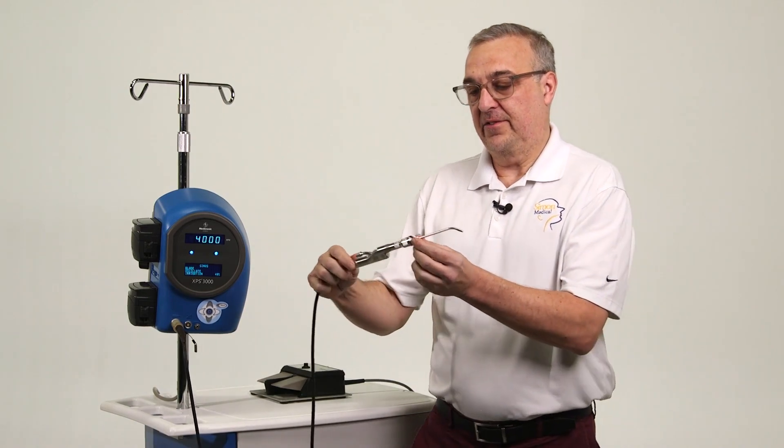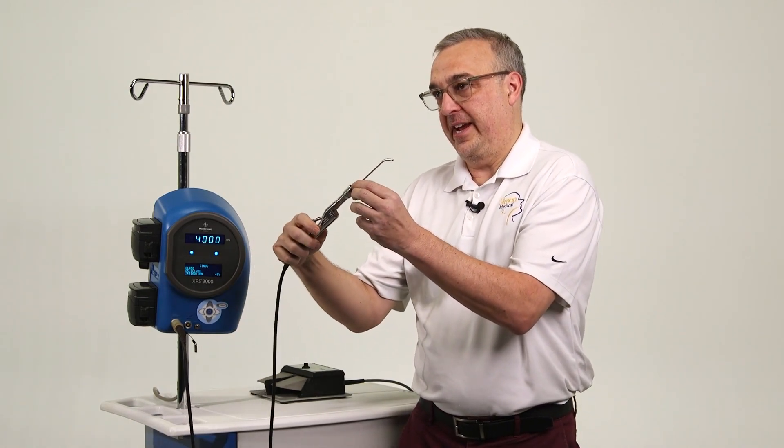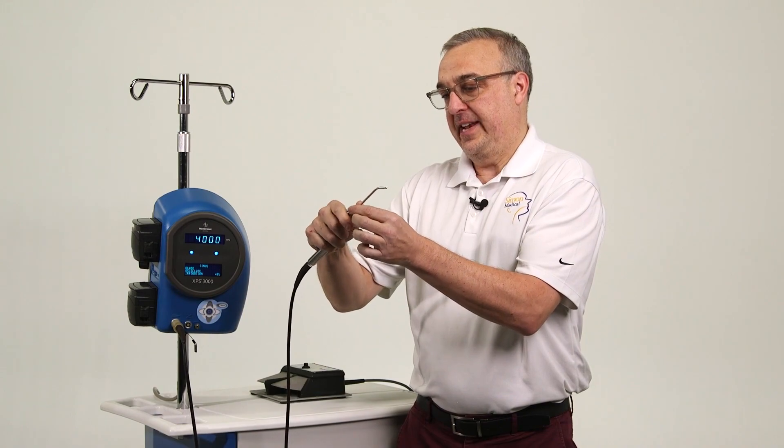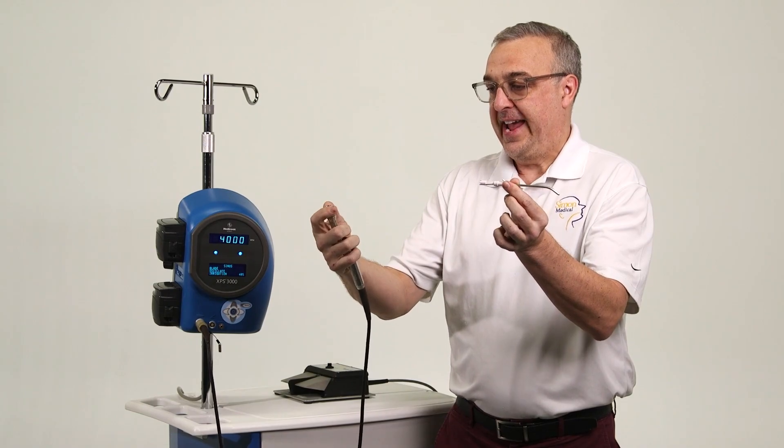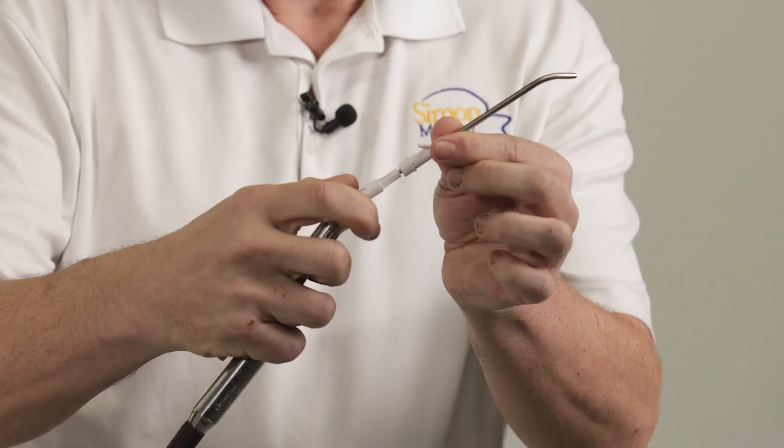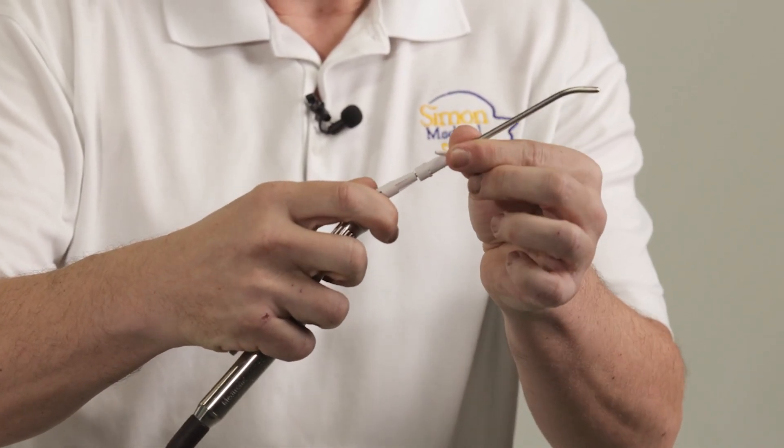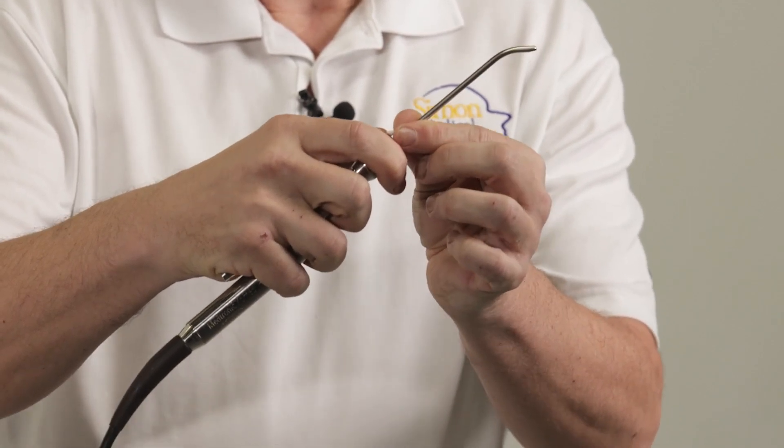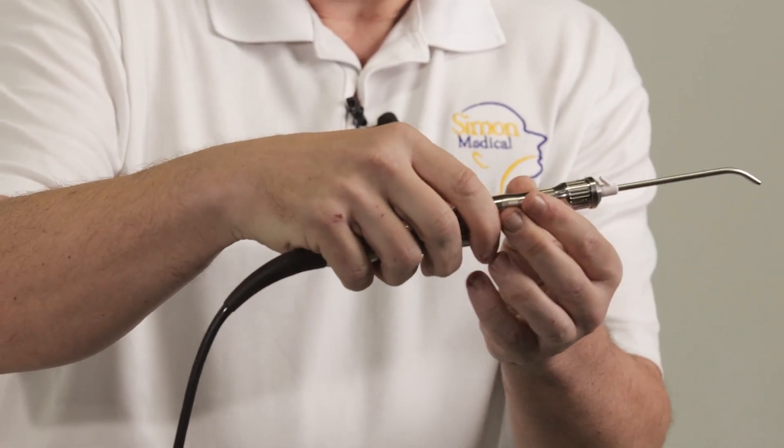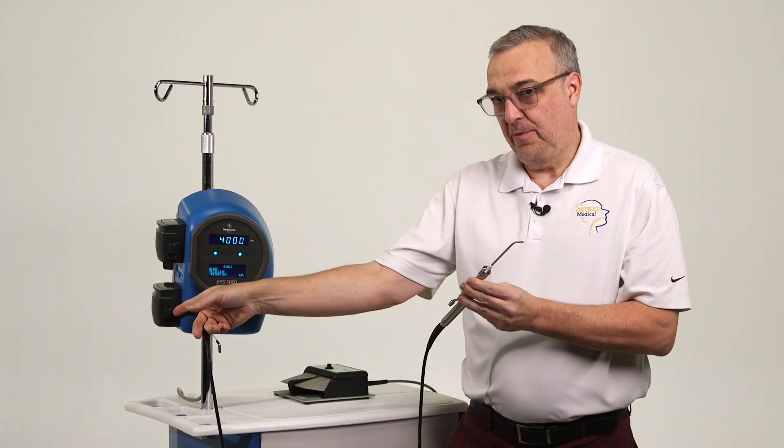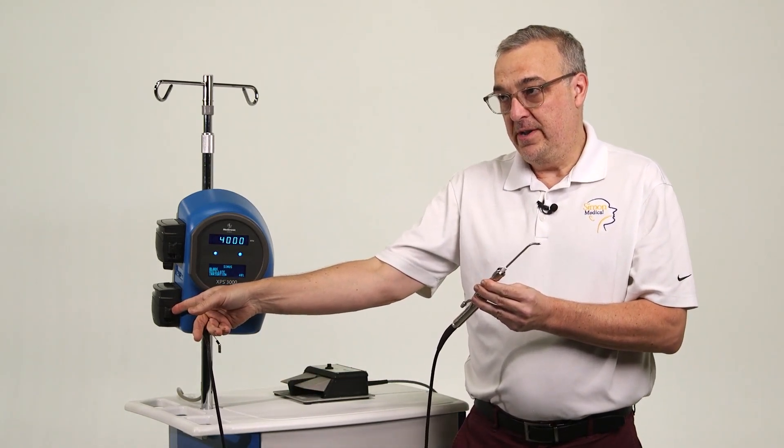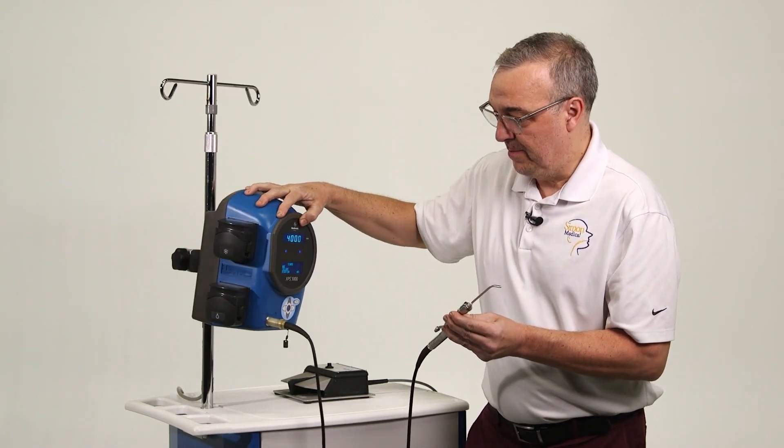Irrigation, there's an irrigation port on the blade. I'm going to take the blade out and show you how it goes in. So the blade simply, there's a cap here. You simply pull it down. It's kind of like a drill. If you've got an old Ryobi drill at home, it kind of goes in just like that. We'll have the irrigation tubing. We'll actually run through pump number one.